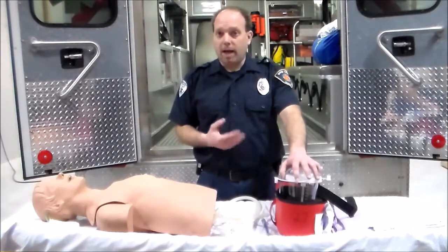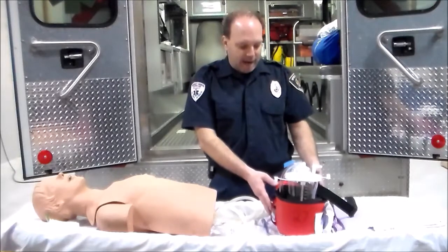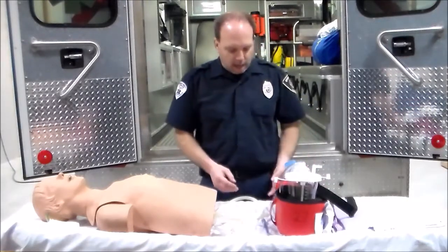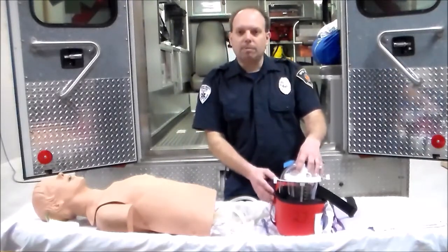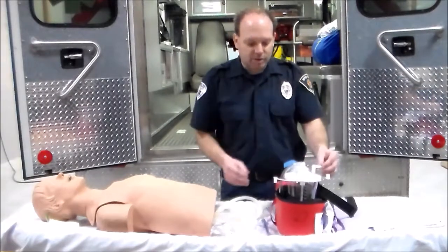What I'm going to demonstrate right now is a portable suction unit. It has a power supply in the back, a bottle of water so we can flush out our line, and a power switch. The power supply already has the vacuum coming out of the canister.